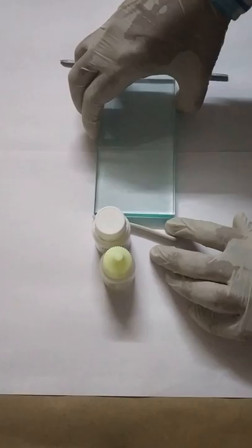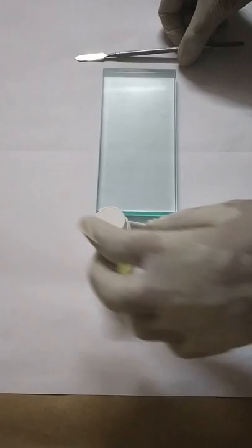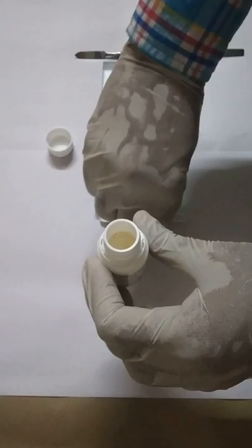Now we take a cool dry glass slab in order to dissipate the heat during the exothermic reaction.